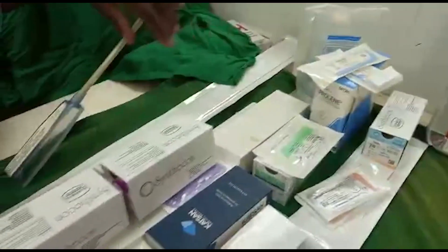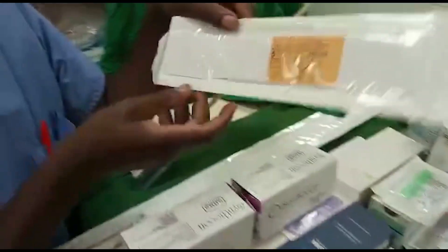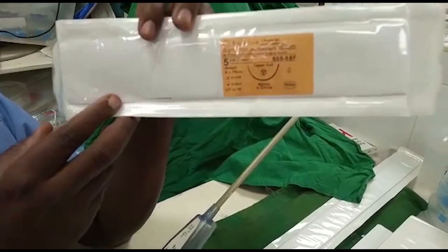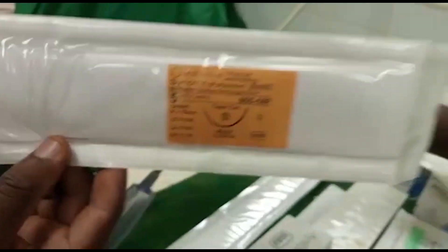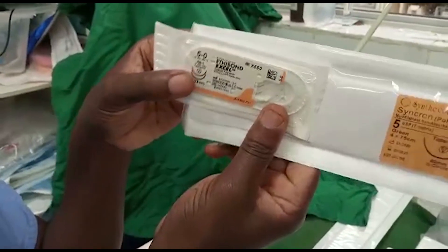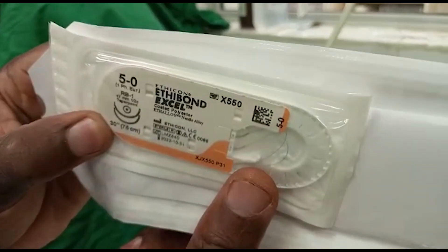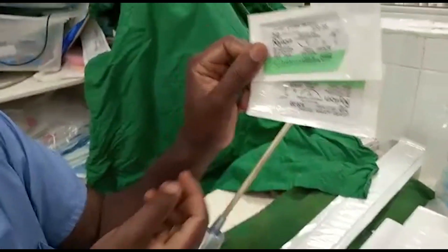Our second example is Etibond sutures. We have number five appearing as the biggest and also some smaller sizes of Etibond — these are Etibond sutures, non-absorbable. Another example is nylon sutures.